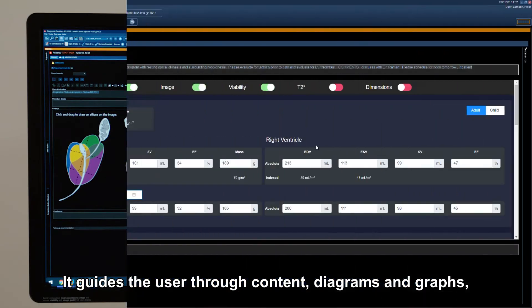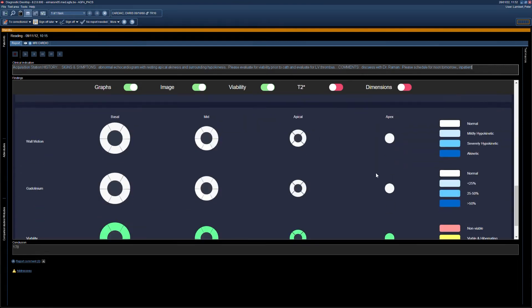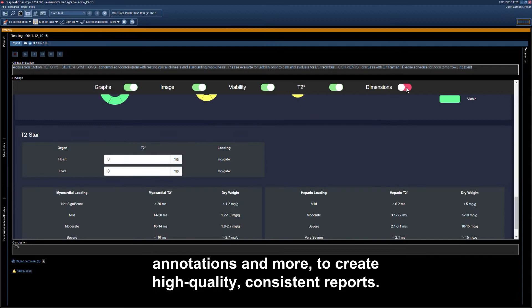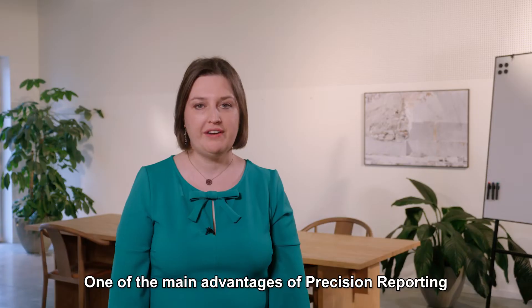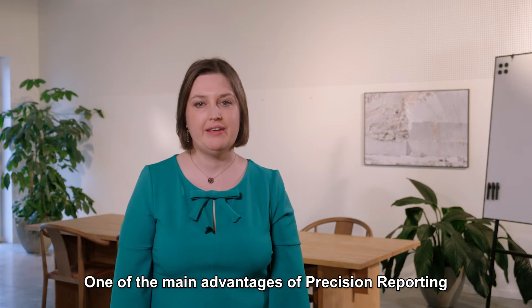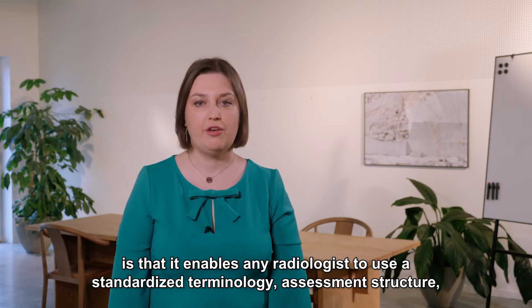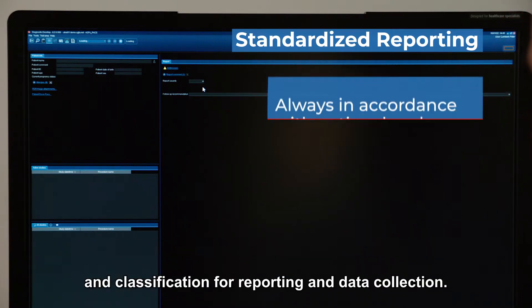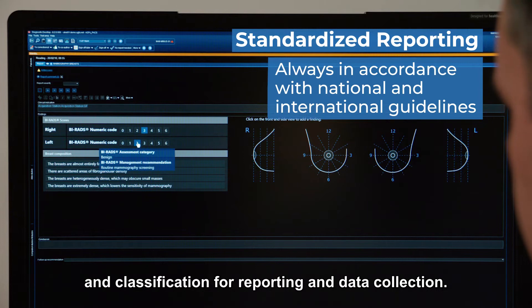It guides the user through content, diagrams and graphs, annotations and more to create high-quality, consistent reports. One of the main advantages of Precision Reporting is that it enables any radiologist to use a standardized terminology, assessment structure and classification for reporting and data collection.